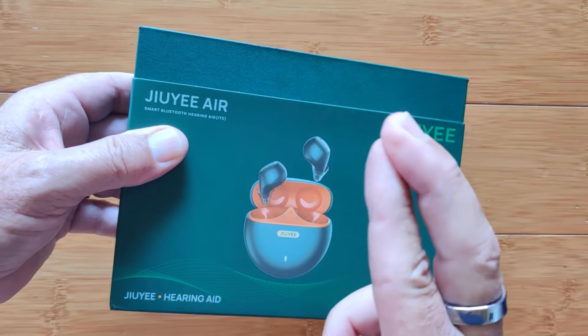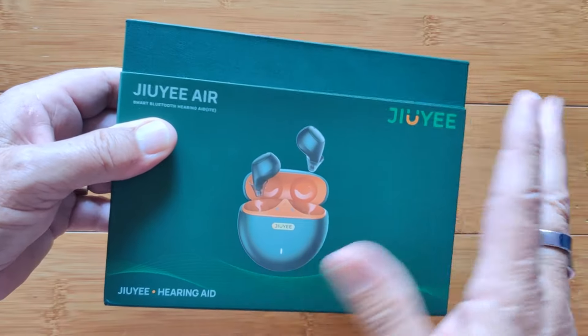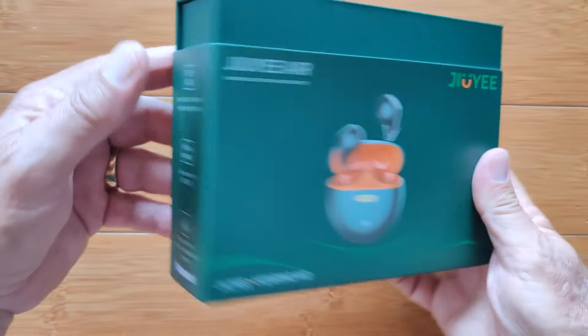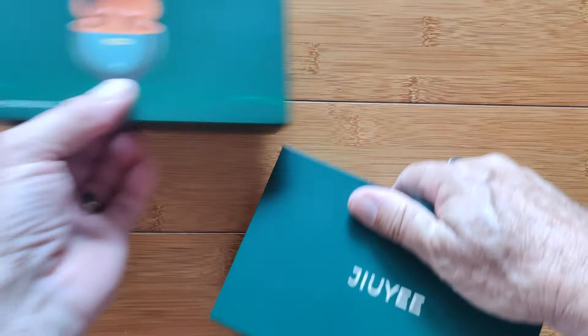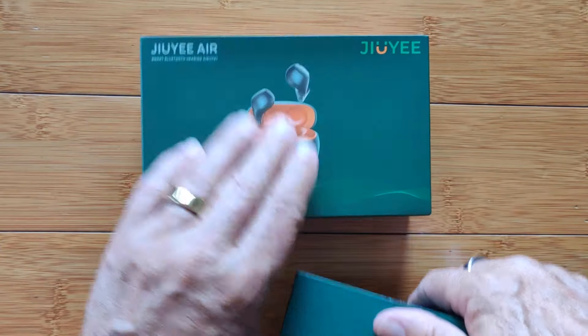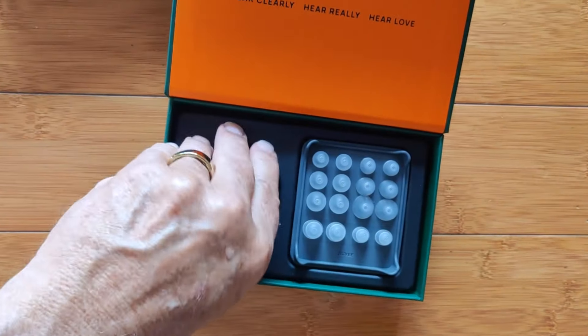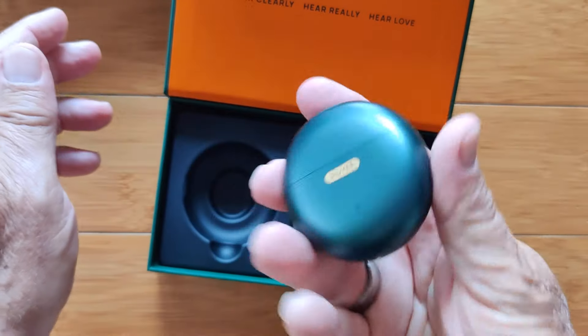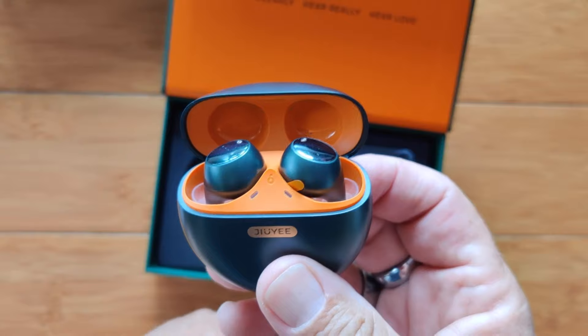I love it when two technologies integrate together to give you the best of both worlds. Greetings and welcome to SmartWatchTix.com. No, it's not a smartwatch. This is the time we get to play with some different technology, which you're going to find in this box from Juye — it incorporates a little case that holds inside two TWS earbuds.